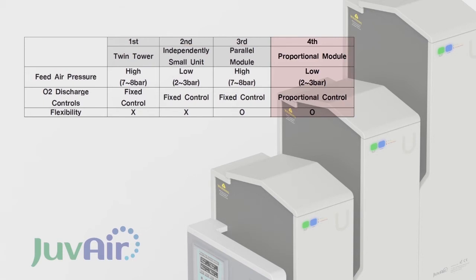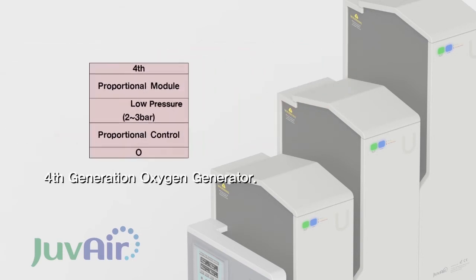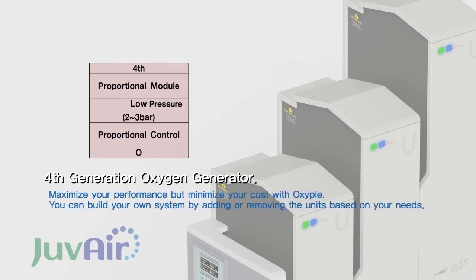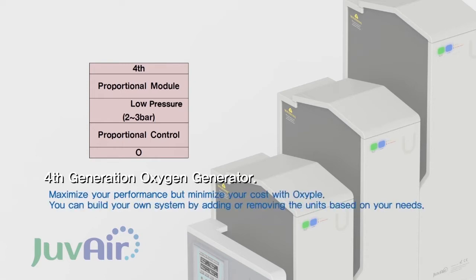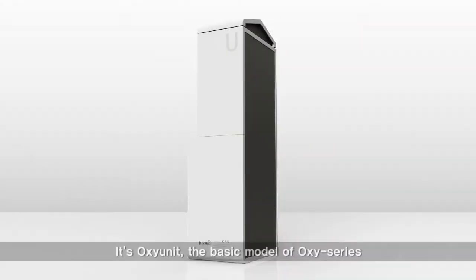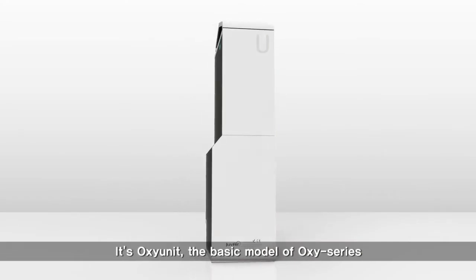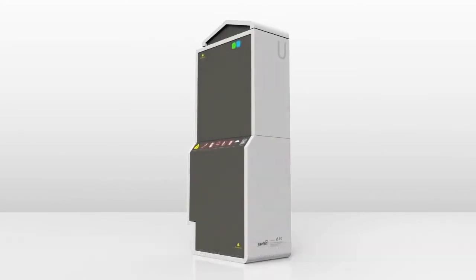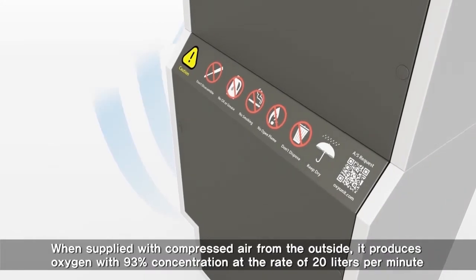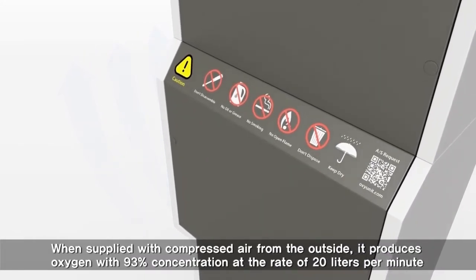The fourth generation oxygen generator can freely expand according to the amount of required oxygen, or can be controlled independently. This is the Oxy Unit — the basic model of the Oxy series. When supplied with compressed air from the outside, it produces oxygen.